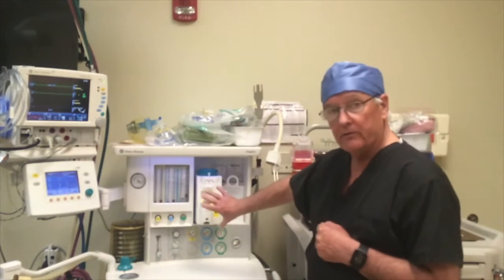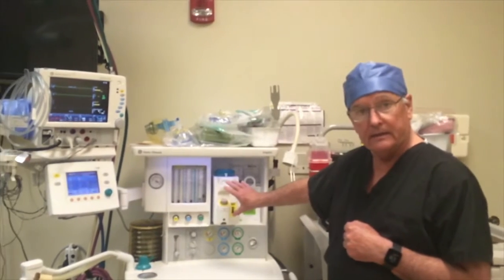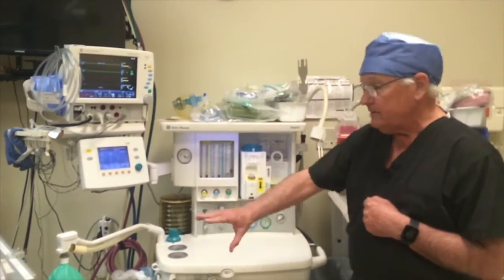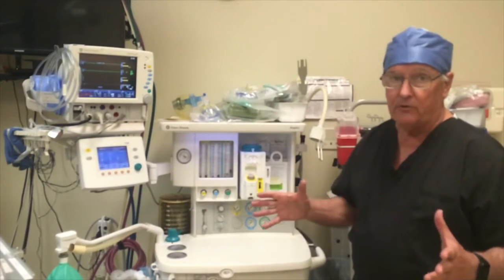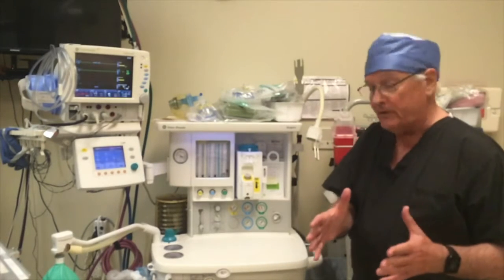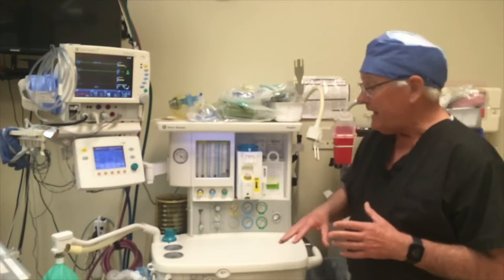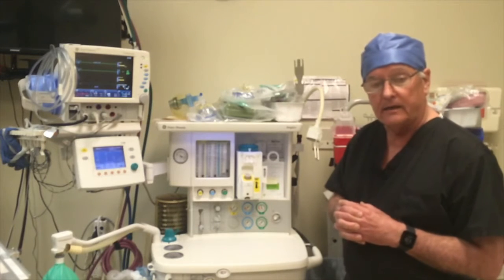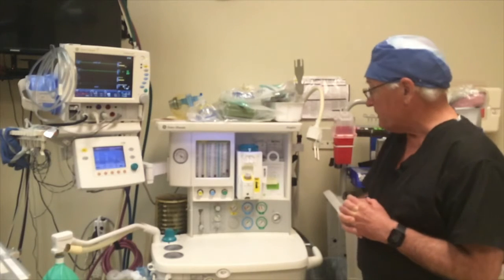You really should take all of the vaporizers off. These are the vaporizers that take the liquid anesthetic and turn it into gaseous phase to deliver to the patient. You take those off. You can, under some extreme circumstances, when you don't have sedatives available, and under the guidance of anesthesia professionals, use that to deliver sedation, but it is not recommended, as there's a lot of hemodynamic effects associated with the use of vaporized anesthetic that novices to anesthesia care might have difficulty dealing with and could be problematic.